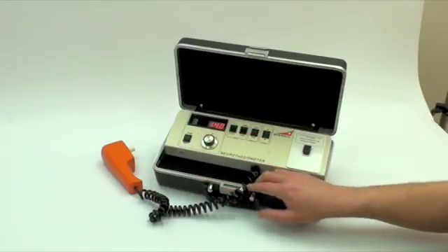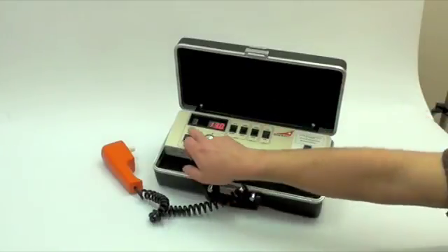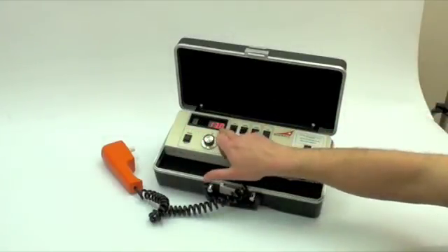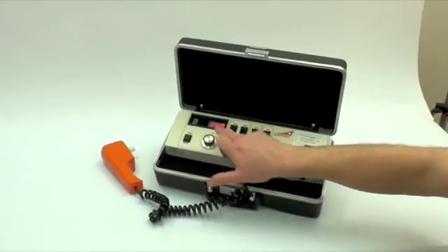When you want to review what you've measured, you press the review button there, and that's memory place one, that was your first score. Press that button, that's memory place two, that's your second score.